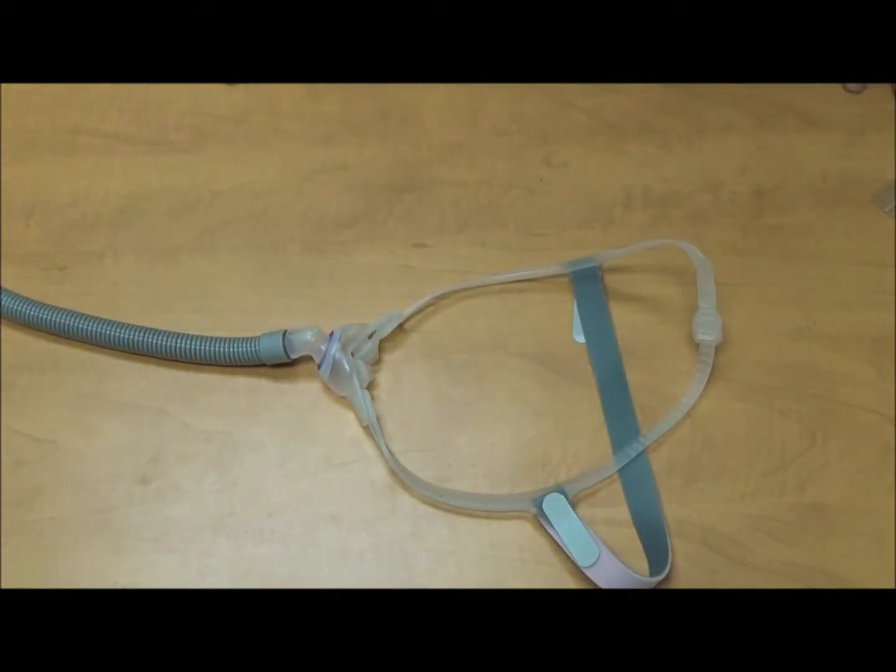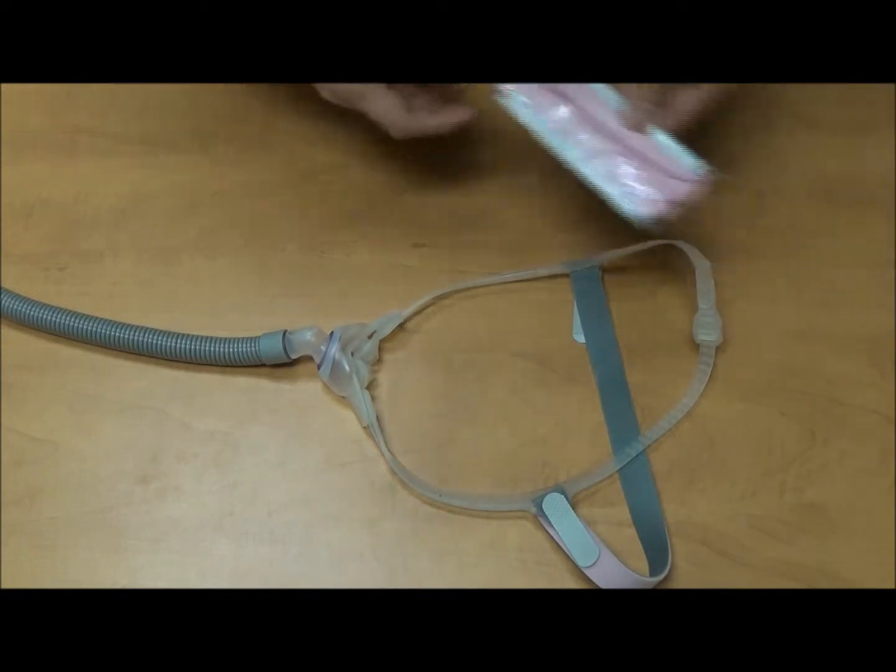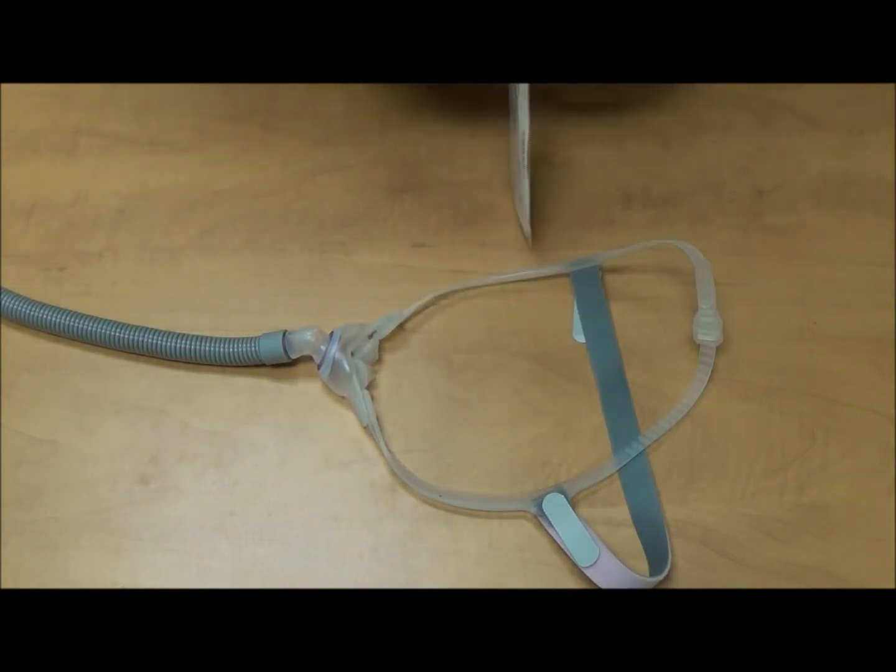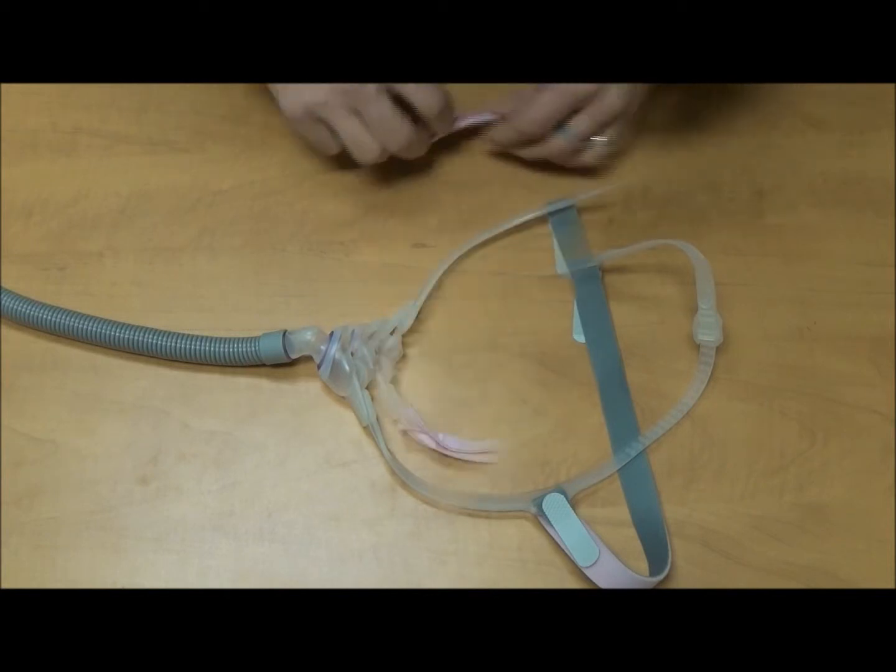Almost. They provide these cute little sleeves. What are these for? These are for the extra comfort.